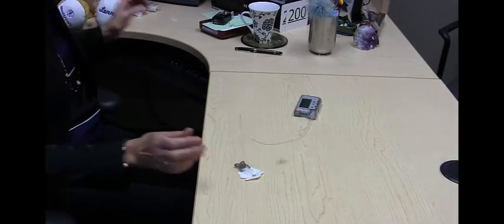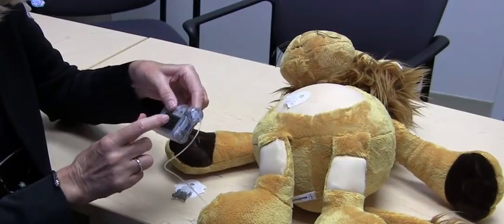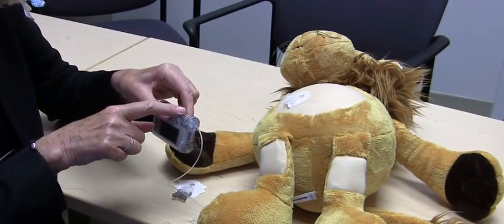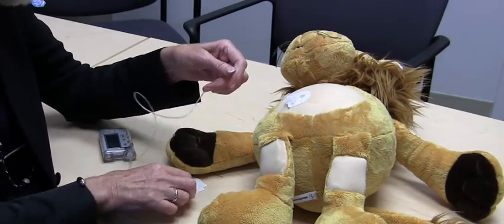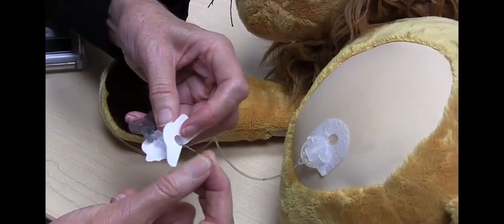And we have a lovely lion here that we could demonstrate on. So here is the pump, battery driven, insulin is in the cartridge here. There is tubing which will be connected to the site and I'm removing the protective cover.